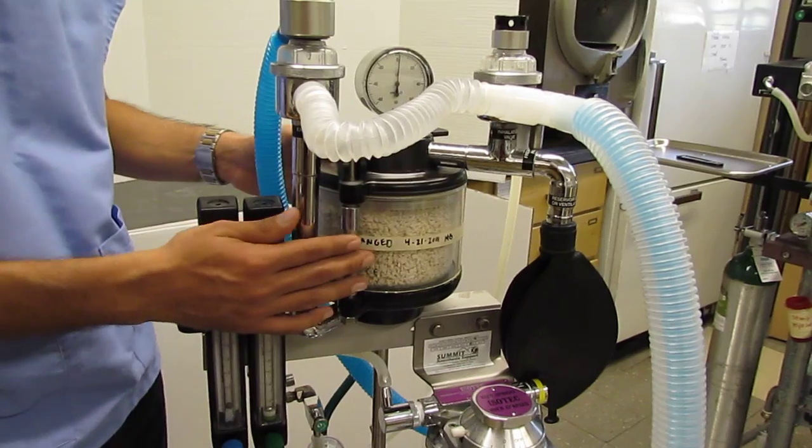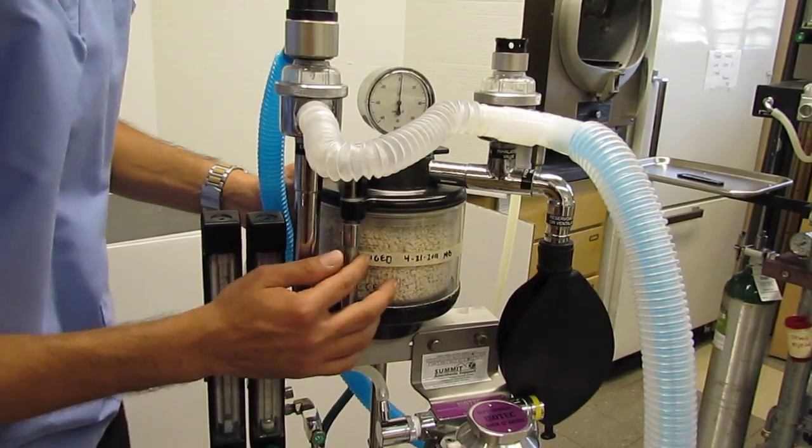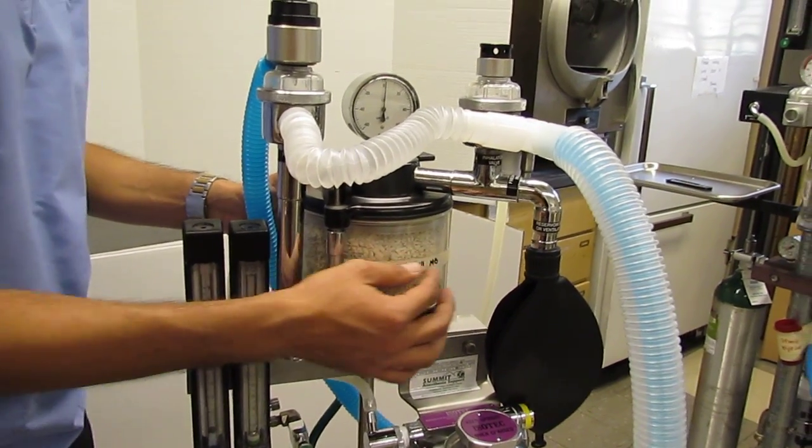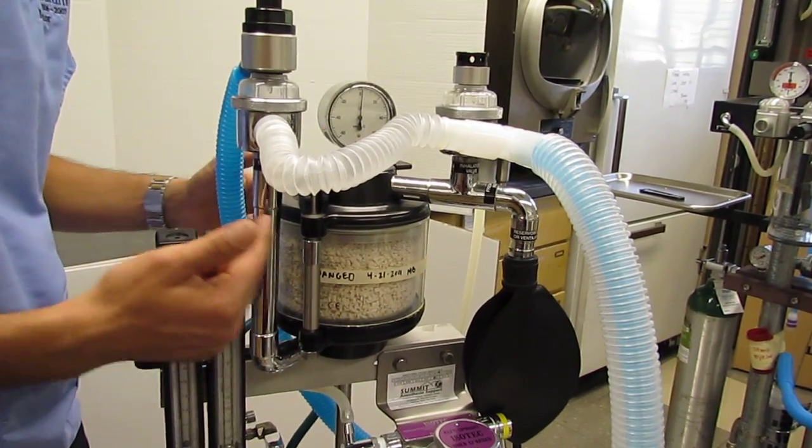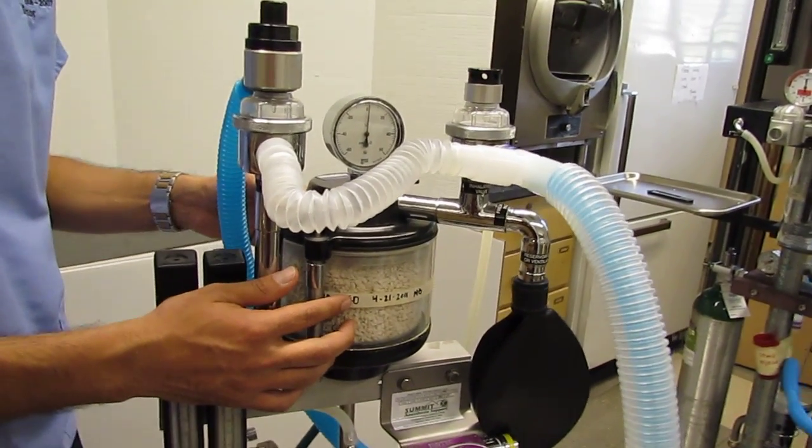You still have to change it out. For that reason, we usually write our names, our initials, and the date when we changed it last, and we keep that in mind as part of our ongoing maintenance of the machine.